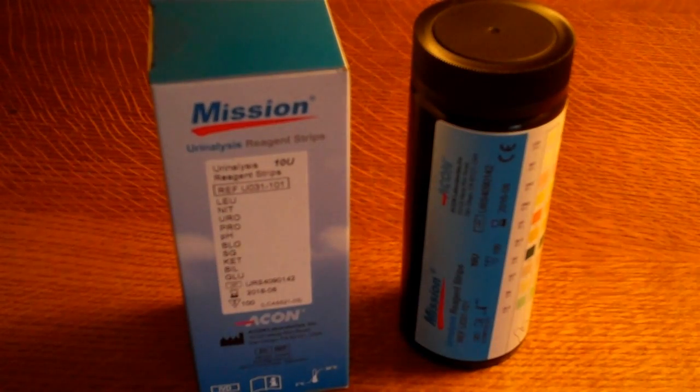In this demonstration we are going to show you the Mission 10U10 parameter urine test strip. This format is the most widely used test format for hospitals, clinics, GP outpatients, and basically medical healthcare professional screening of urine samples.